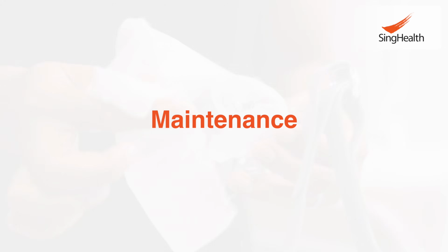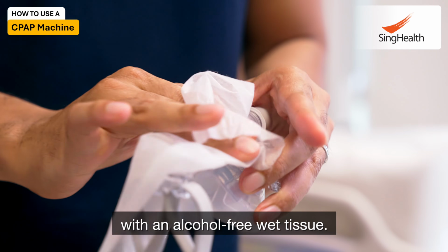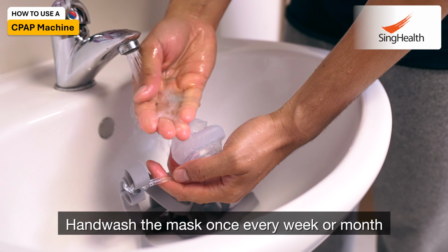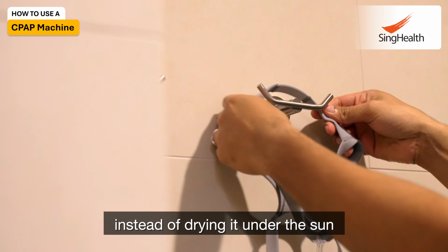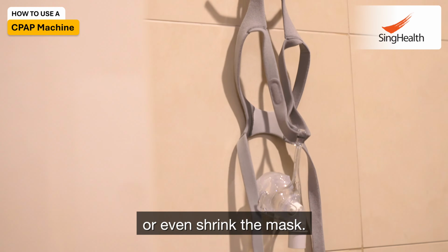Maintenance. Wipe the mask every morning after you have woken up with an alcohol-free wet tissue. Ensure to use hand soap instead of detergent. Hand wash the mask once every week or month, depending on your free time. And allow the mask to air dry instead of drying it under the sun, as it might damage the silicone or even shrink the mask.